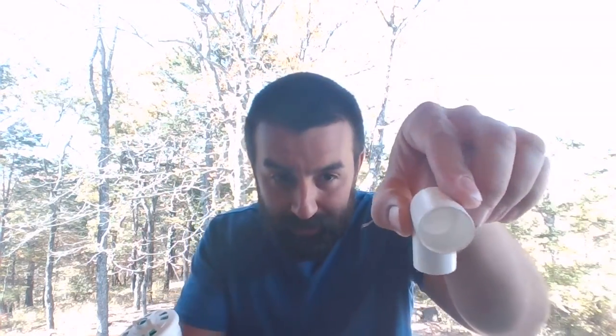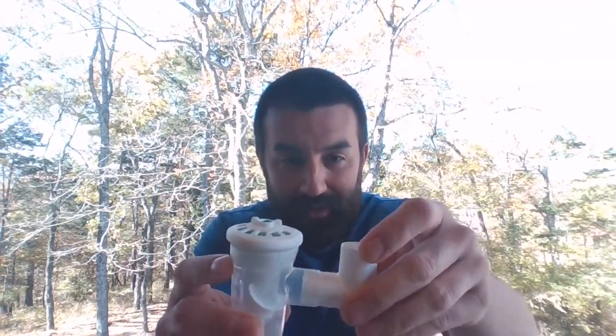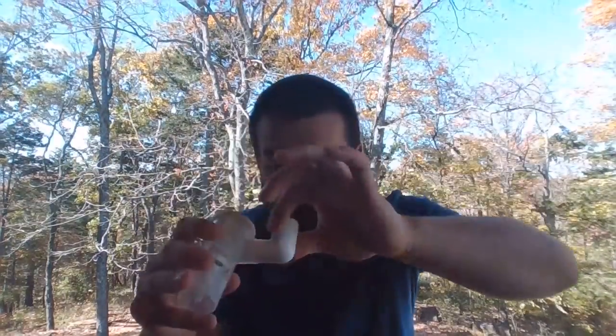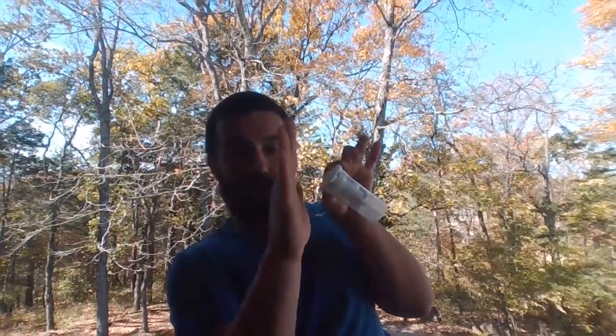What we need is a band elbow. Now, there's other things that we can use that we can make work. They do make a commercial band elbow, and all it is is a 90-degree elbow that has the proper fitting. So it gives me the ability to slide right inside of that thing. It gives me the ability to articulate left and right, which is useful if your patient's sitting kind of semi-Fowler's or something, or not quite all the way upright.